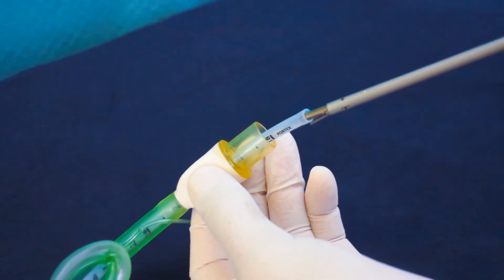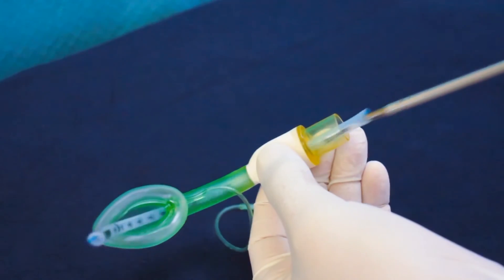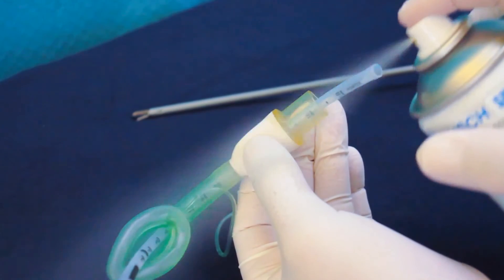How do we address the fine points? Whatever technique you use, always check first that all parts of your equipment will fit and move freely, and always use a lubricant such as silicone spray to facilitate movement.